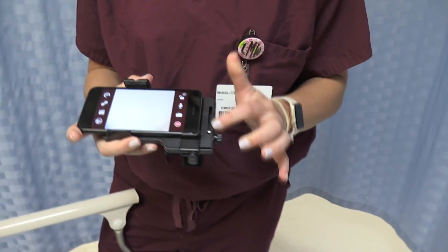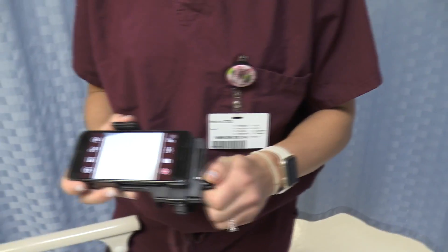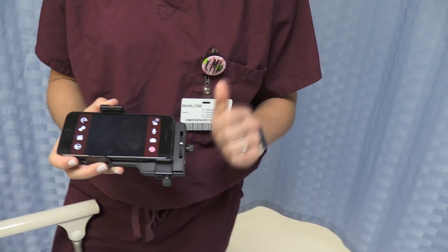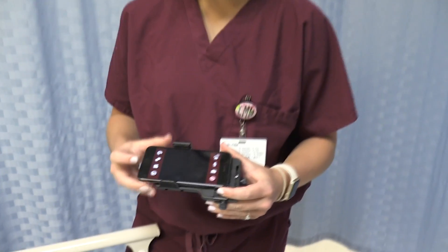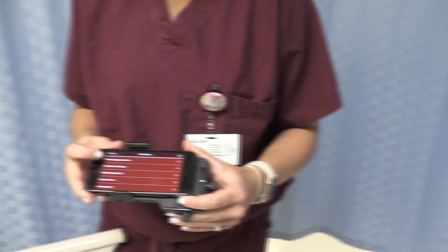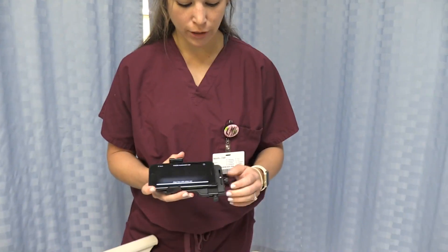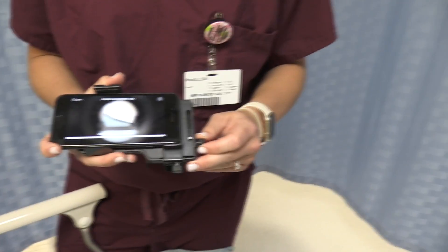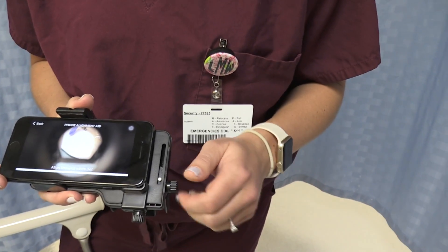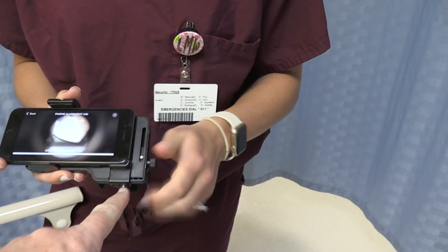Place the phone so the corner is aligned right here. What happens when you move the white dot — okay, now that you've misaligned things, you're going to have to realign. Click the settings button, then click phone alignment aid, and a white line appears on the screen. Move the white dot to align with it, then lock the dot back into place by tightening that knob.